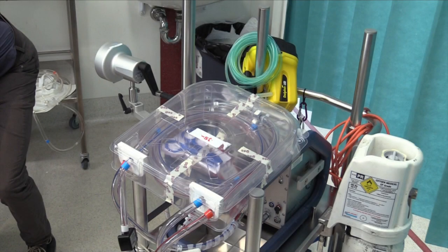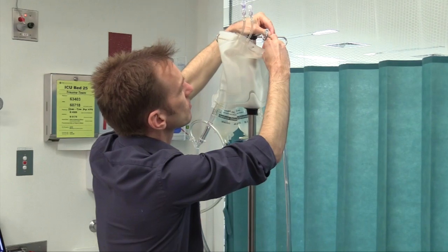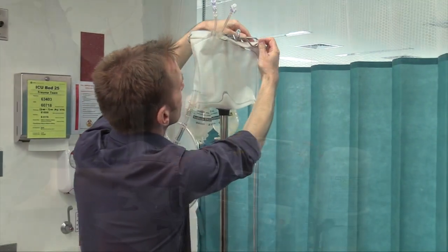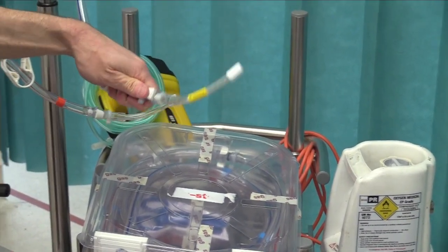Lower the cardio help arm and place the sterile tray on top — it should sit securely. The contents of this tray should remain sterile. Now to complete the circuit, hang the priming bag, or alternatively use the dedicated priming board to hang the priming bag on. Move both ends from the sterile tray tubing and the priming lines, then connect them to each other.